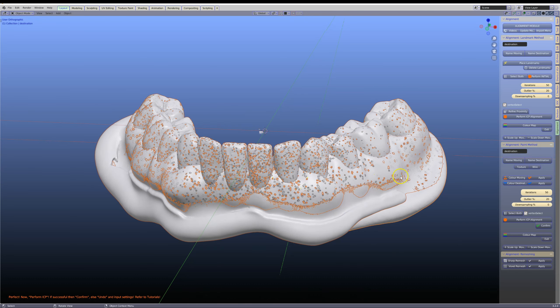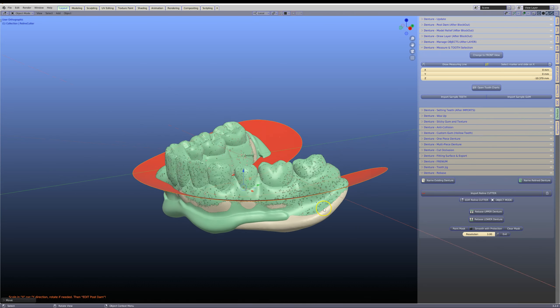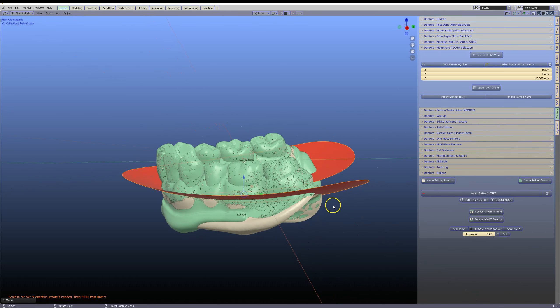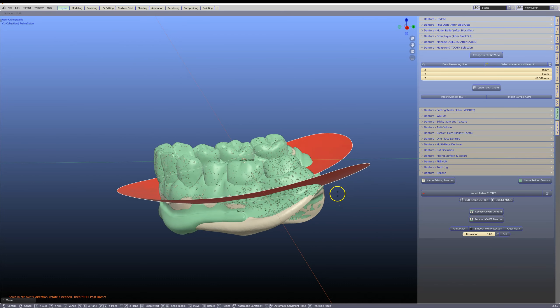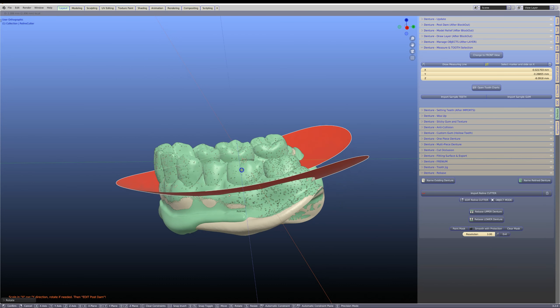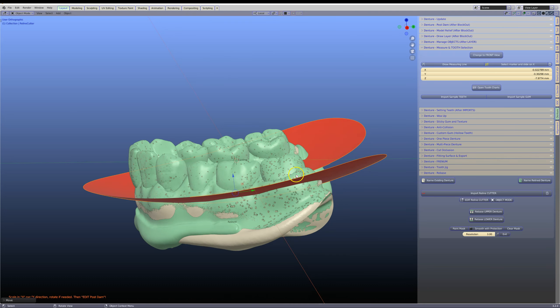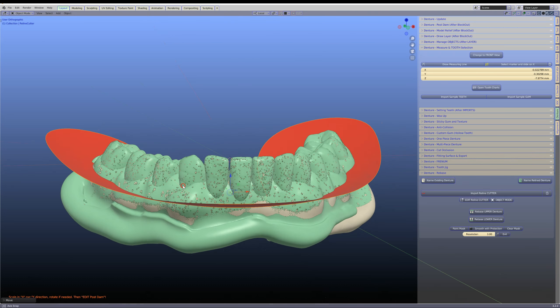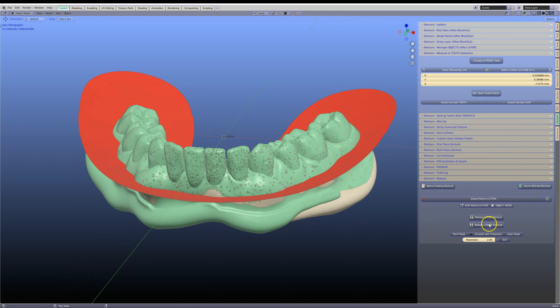The next thing we're going to do is import a cutter. The purpose of that is to get a mutual cut along both dentures. We're going to move this up and basically sever off the top teeth, getting this as close to the gingiva as possible, something like that.